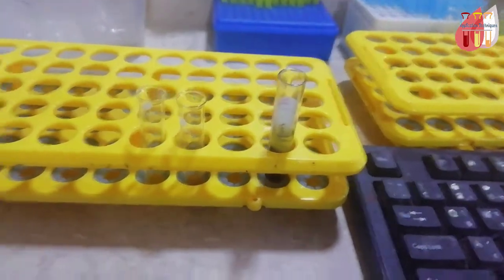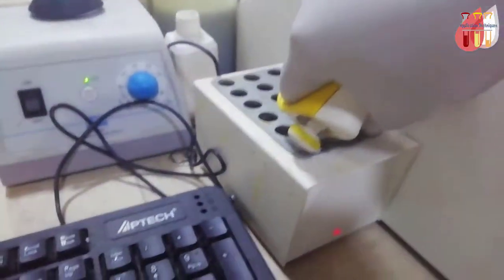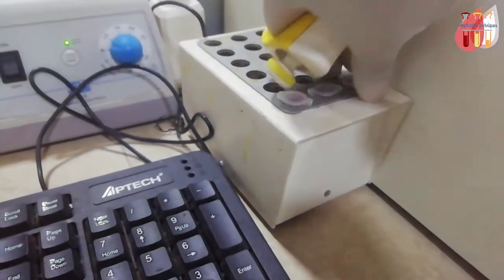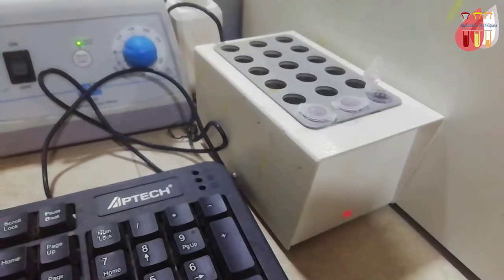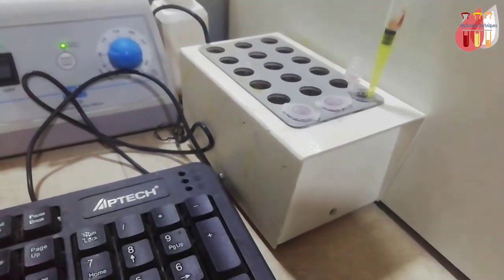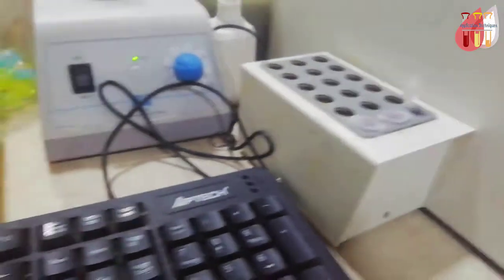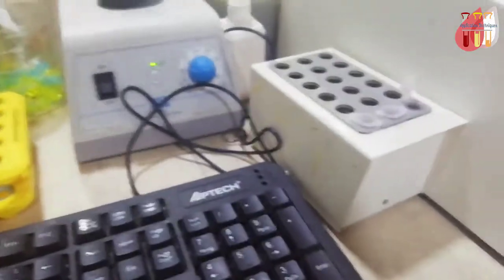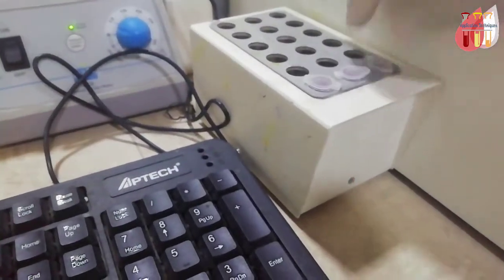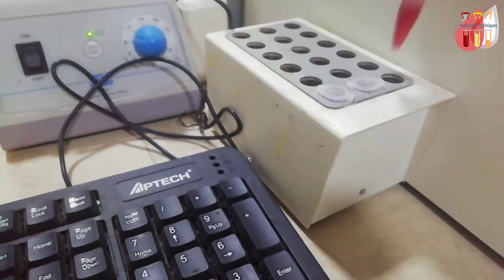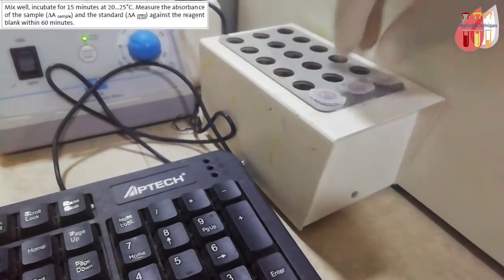Avoid hemolyzed samples and lipemic samples. For iron tests, do not use hemolyzed or lipemic samples.